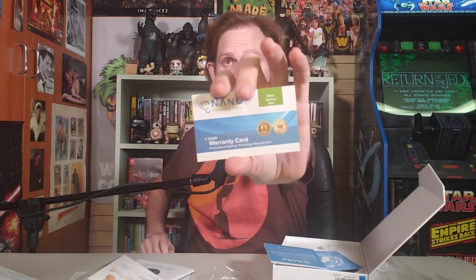It tells you all kinds of stuff about the ear tip, stable line, microphone, assembly, up, down. We've got a one-year warranty card — that's nice, very helpful — with numbers and info on the back in case you need to get ahold of them. Good that it's not just a phone number; there's email too, in case you're calling and it doesn't work.